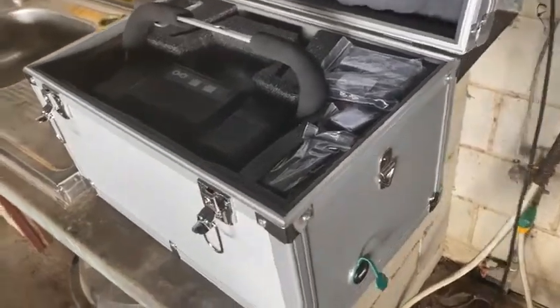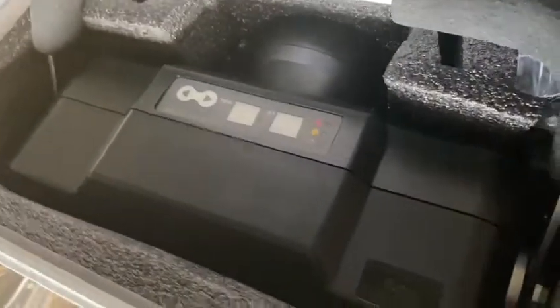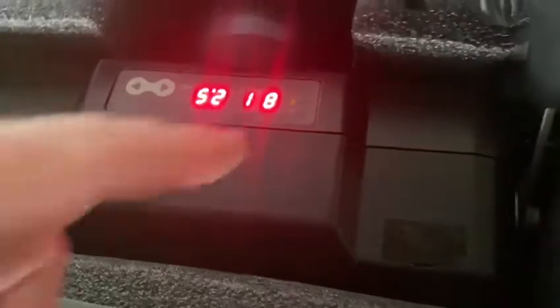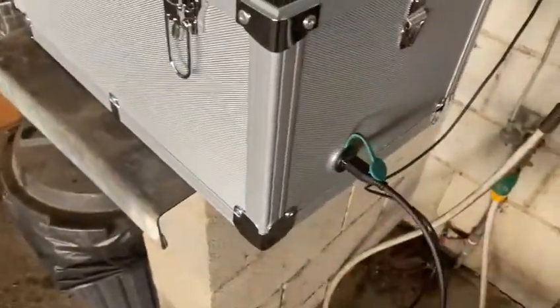You can charge this POSCOM just by leaving it in the box. Plug in the USB cable into the side of the case and that will come on indicating that it's starting to charge, sitting on this little charging pad inside. Just like with your phone, you can have it sit in the box and so long as it's plugged in it's going to charge.